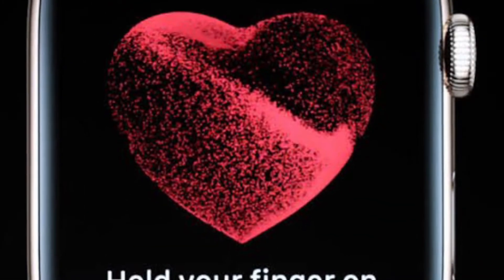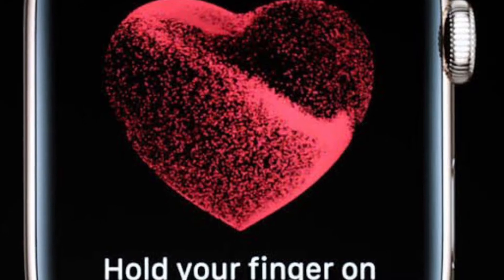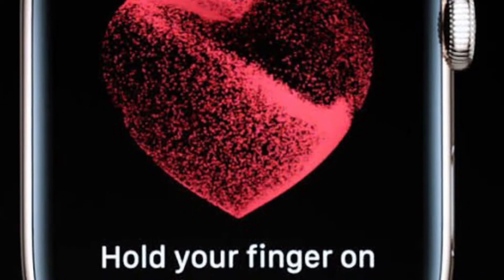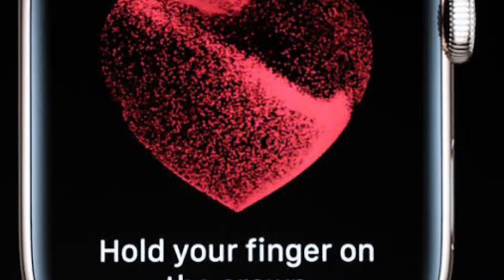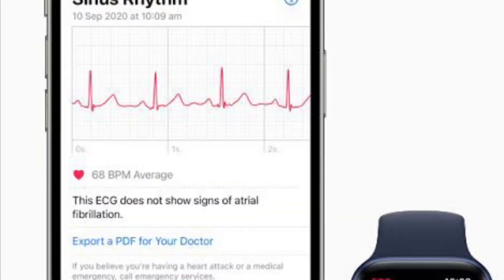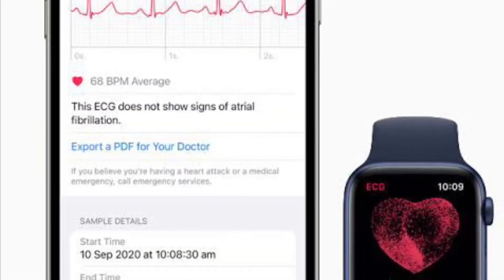However, you can verify which version of the irregular rhythm notification feature you have on your Apple Watch or iPhone by following this hands-on guide.